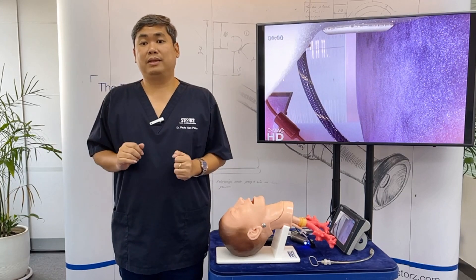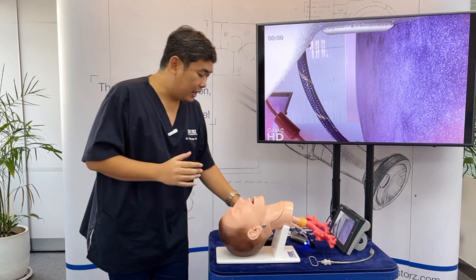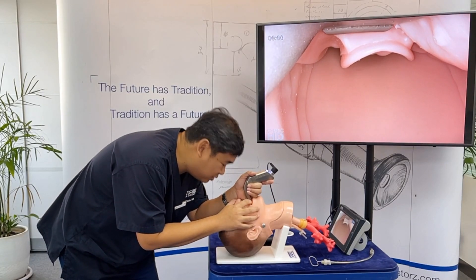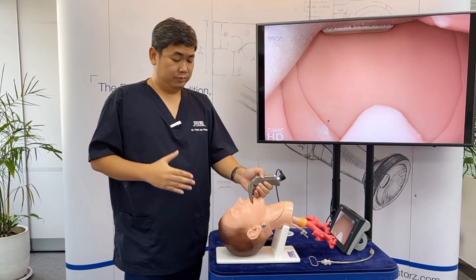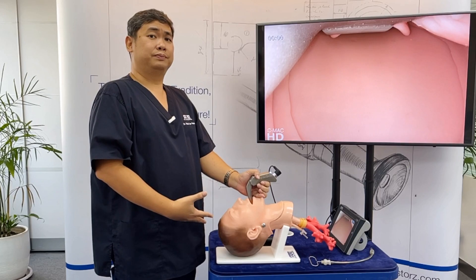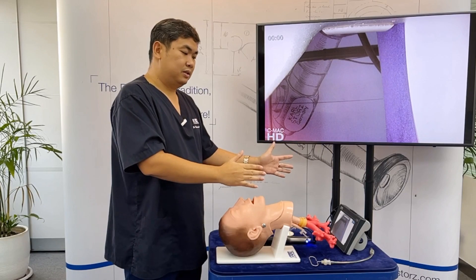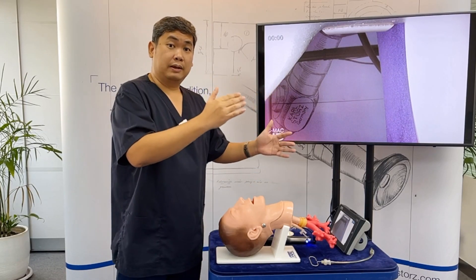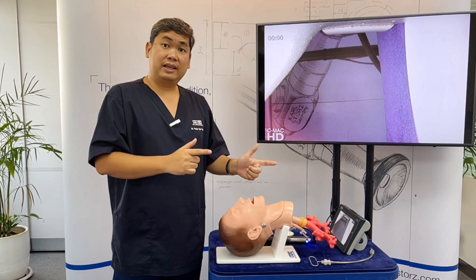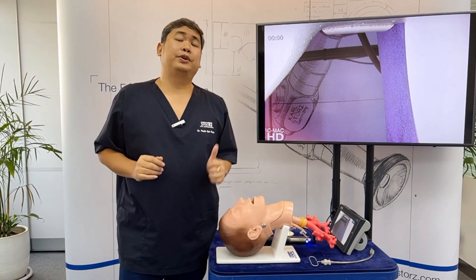Another advantage of having a bigger screen is user comfort — you don't have to bend your back to perform video laryngoscopy and can maintain proper posture. Another advantage is safety. Since we have a better view, we can intubate the patient better, we have a higher success rate, and we can intubate more difficult airways, making it safer for the patient.